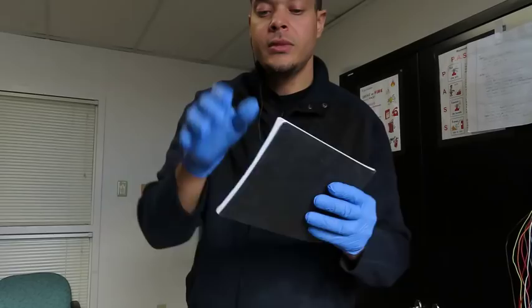And again, this is just one system. Everyone has their own certain process in place. Especially if you've been doing this for years, there's people that can breeze through these, 20, 28 different wires, 30, sometimes way more, within like 20, 25 minutes, just because they're so used to doing it. But so these are good.